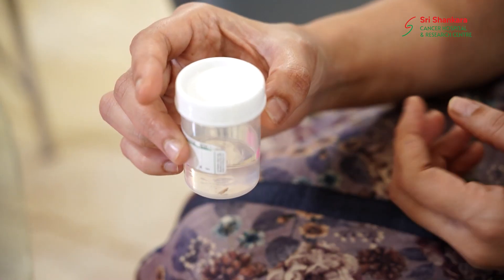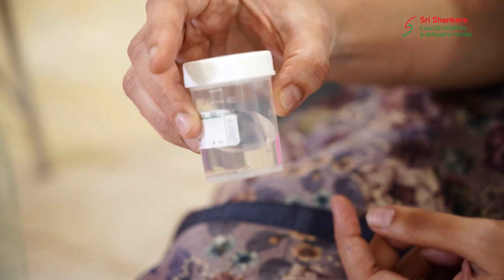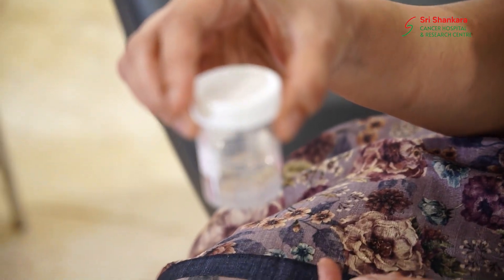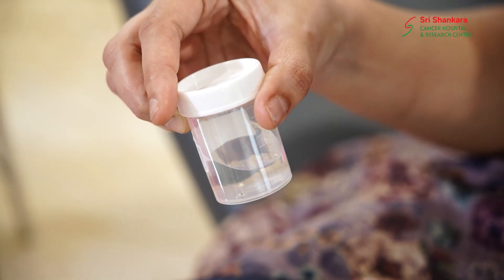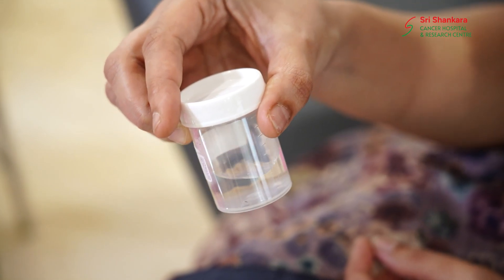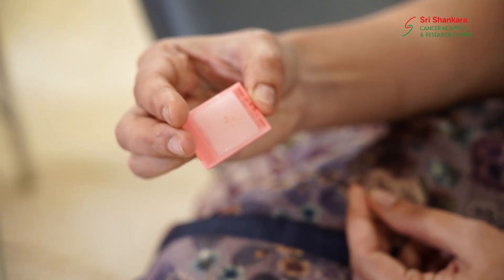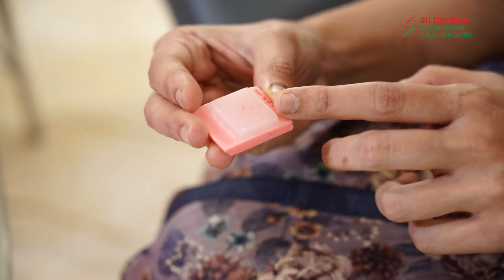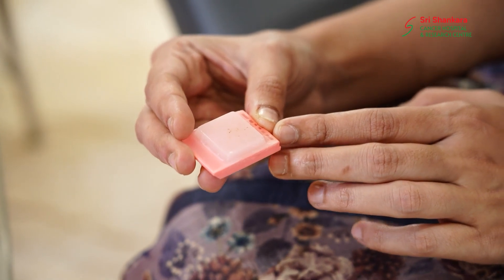After Dr. Bharath does this procedure, which requires a lot of expertise, we get tissue something like this. We receive the sample of the tissue — we can see these small tissues inside in the appropriate fixative medium. This tissue is subjected to chemical processing and is then converted into a tissue block called a paraffin wax block, with the tissue embedded inside and safely preserved.